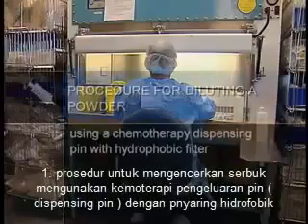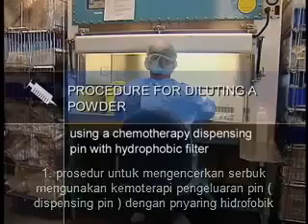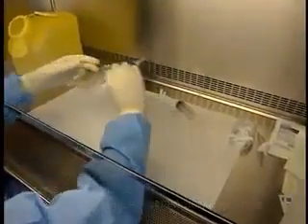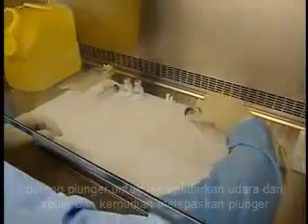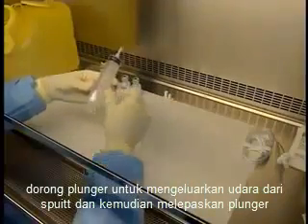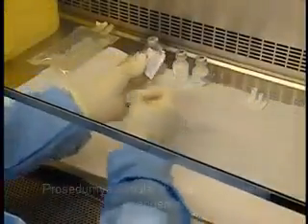Procedure for diluting a powder using a chemotherapy dispensing pin with hydrophobic filter. Sit down at the cabinet. Arrange the syringes in the cabinet, taking care not to disrupt the laminar flow with your hands. Push in the plunger to expel the air from the syringe and to loosen the plunger. The procedure begins by drawing the diluent.